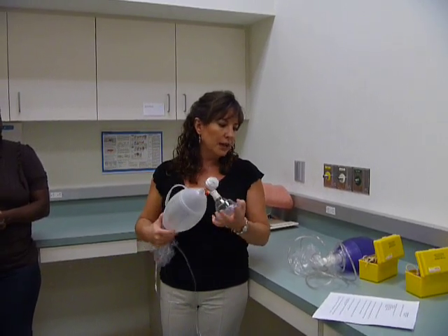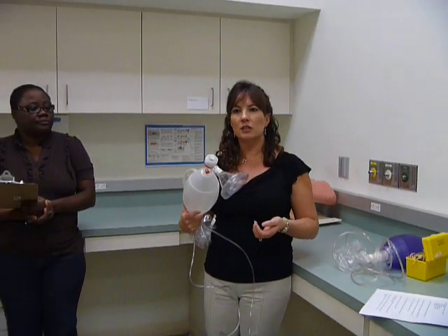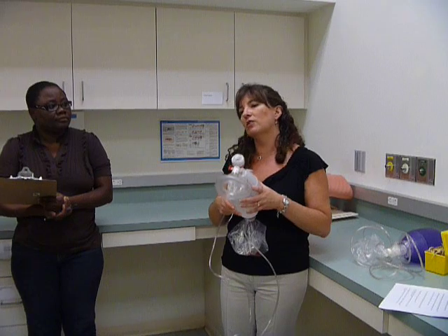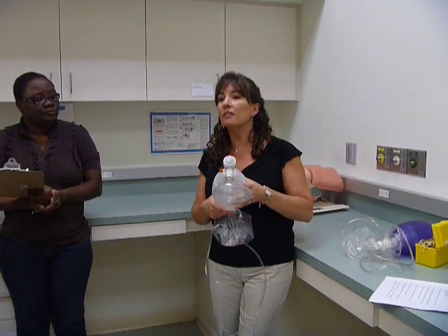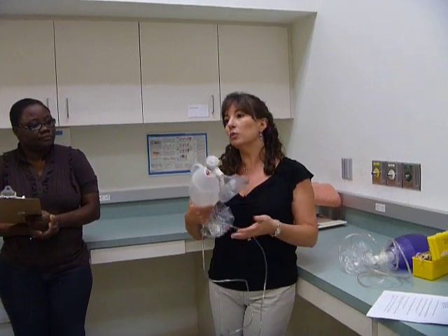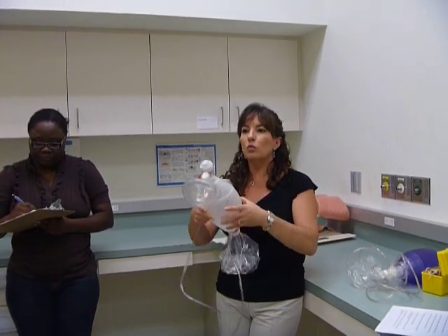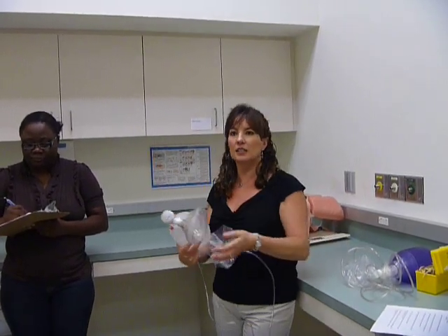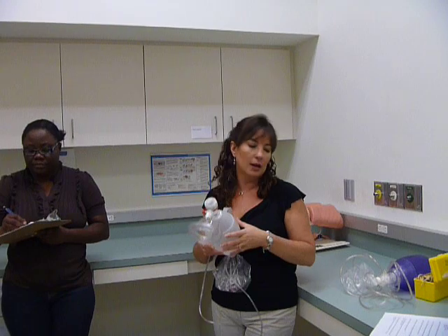Describe the type of patient and exhalation valve with each resuscitator bag. What type of patient would you use this on? You wouldn't use it on everybody that comes into the hospital. It has to be somebody that is obviously having some type of respiratory failure — they can't breathe on their own. So you're not going to just come up and do it. If somebody is having no breathing problems, they're awake and alert, you're not going to give them a couple breaths. This would be somebody that already has a compromised respiratory problem and cannot breathe on their own.